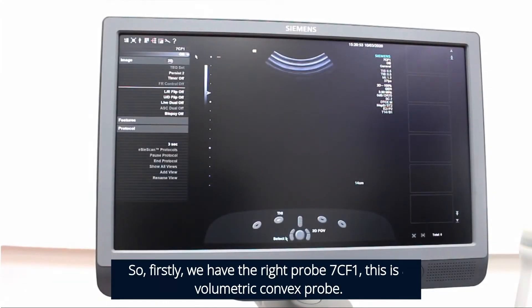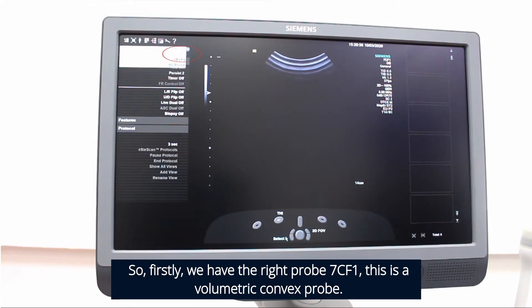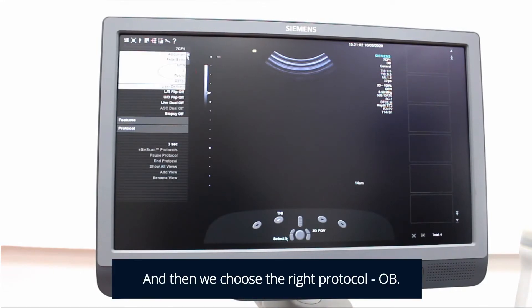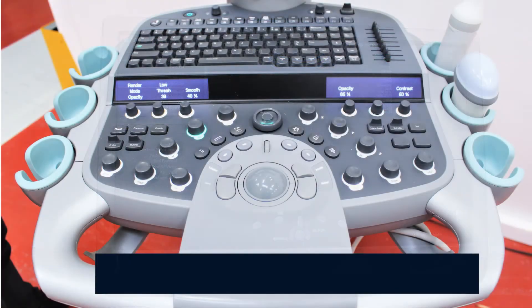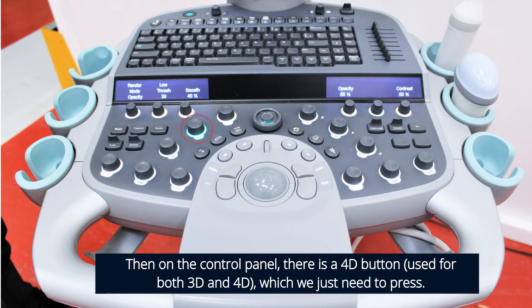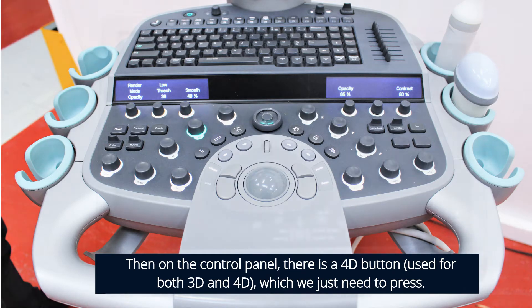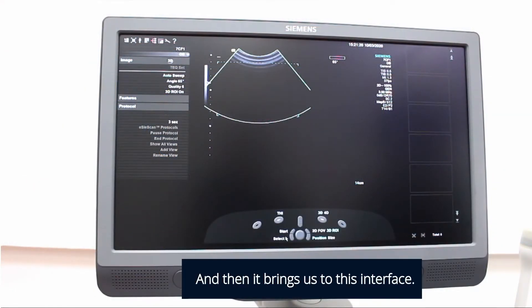First we have the right probe — 7CF1, this is the volumetric convex probe — and then we choose the right protocol. Then on the control panel there is a 4D button; we just need to press it and it brings us to this interface.